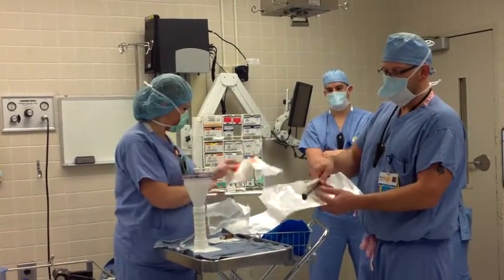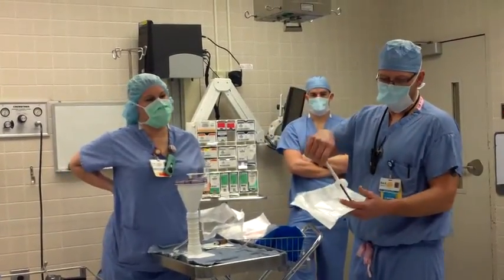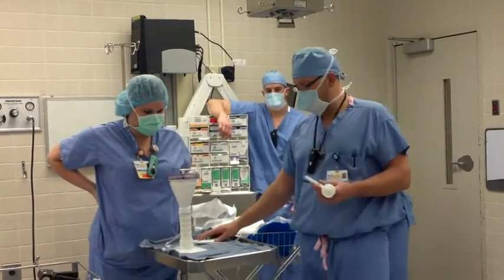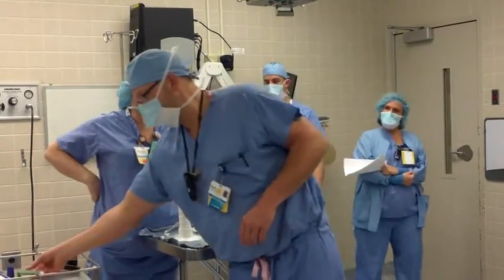You need that prep kit. You need this disposable kit, which has this plunger — it comes like this, and when you open it, be careful because this will fall out on the ground. Usually on the hips you're going to do two batches of cement always. So I just have one here for the gun, and this is also in the kit.